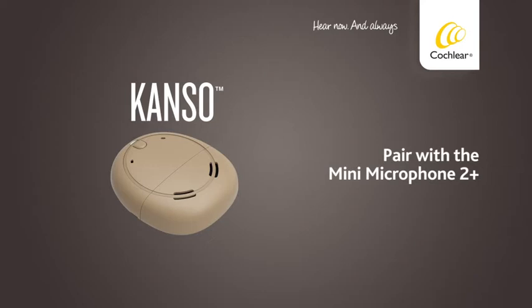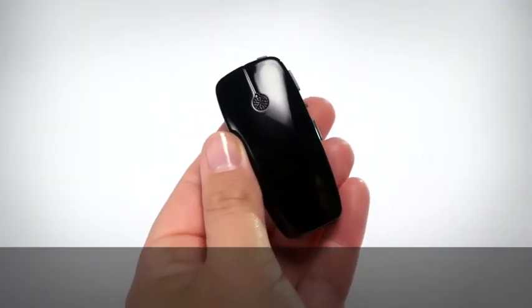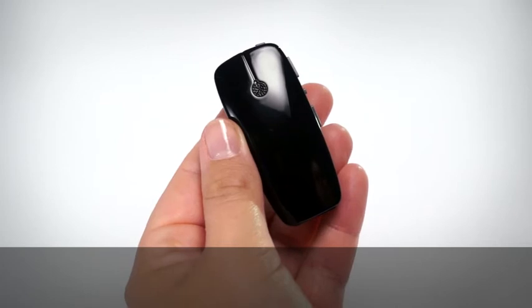Pair with the Mini Microphone 2 Plus. First, you need to pair your Mini Microphone 2 Plus with your sound processor so they can communicate.